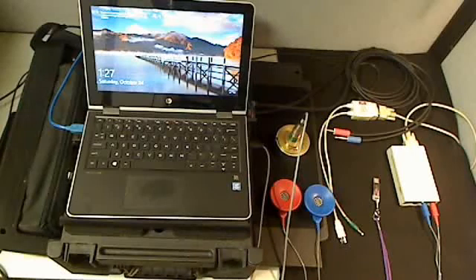How to calibrate an audiometer with an ACS calibration and analysis system. Today I've selected the Benson CCA200 Mini. The ACS system is used in the manufacturing of this audiometer, so we have the manufacturer's complete cooperation in programming into the ACS software and analysis system exactly how the manufacturer specifies that this audiometer has to be calibrated.